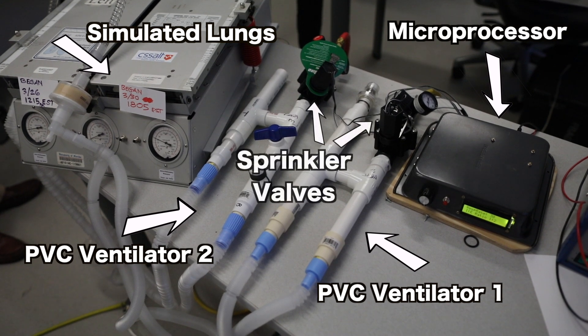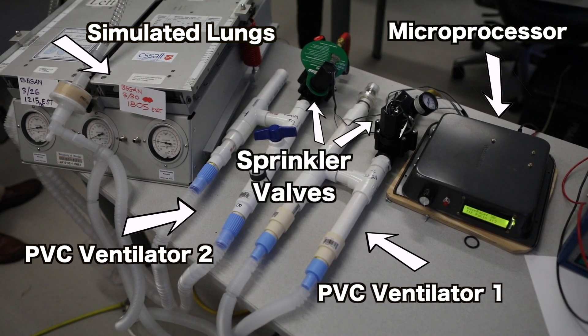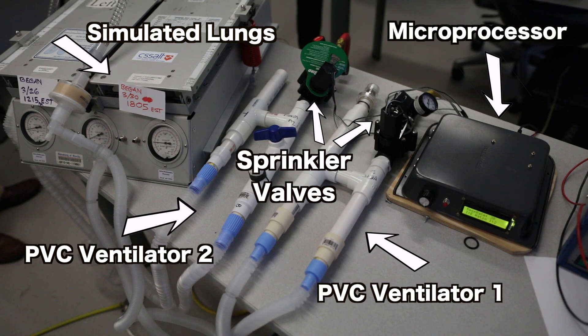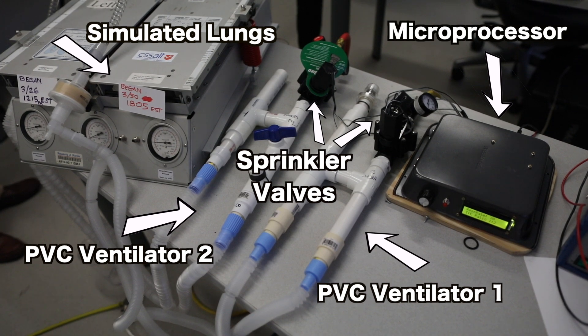So then to fill that gap, which was predicted to be one million ventilators, we had to look for something outside the traditional ventilator supply chain.